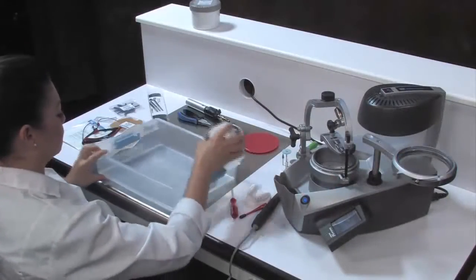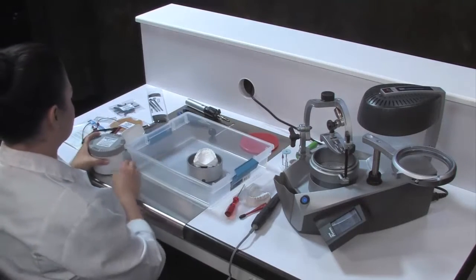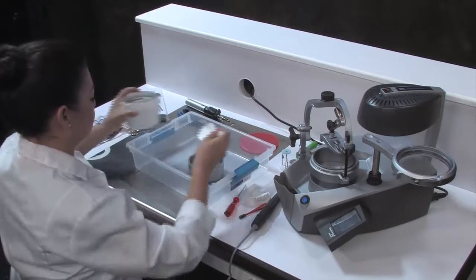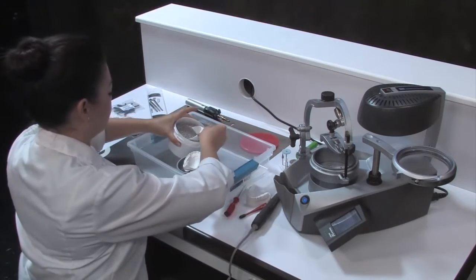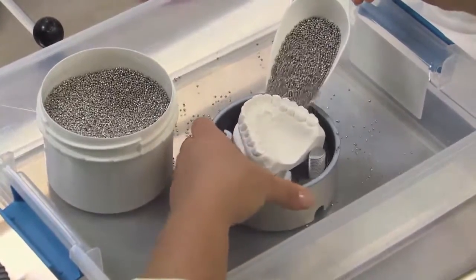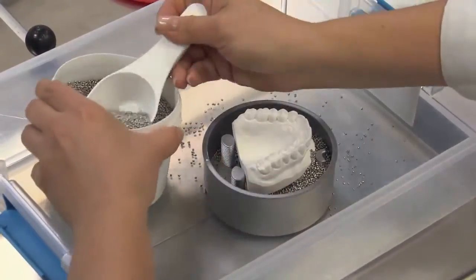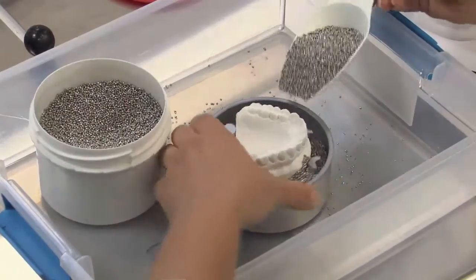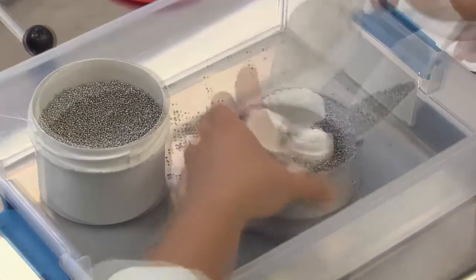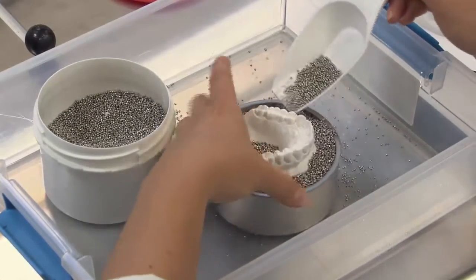Next, grab a container of your choice and place the pot and granule container inside — this will make granule cleanup easier. Use the granule scoop and slowly pour in enough granules so that only the thermoforming area plus 3mm is visible. Any hollow areas under the model must be filled with granules. Continue until the pot is properly filled.